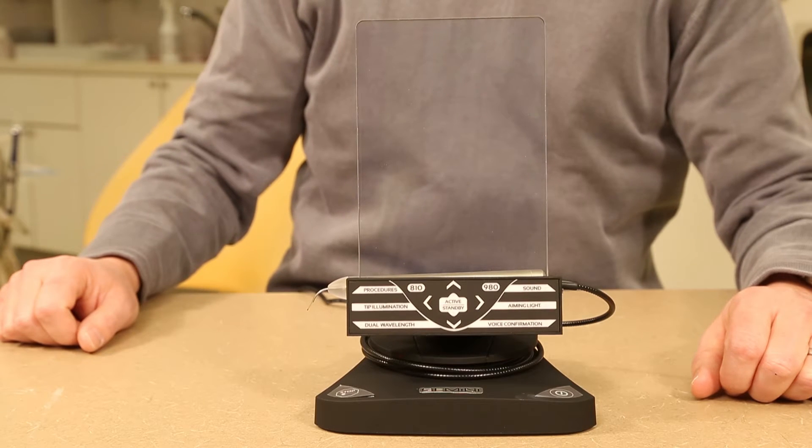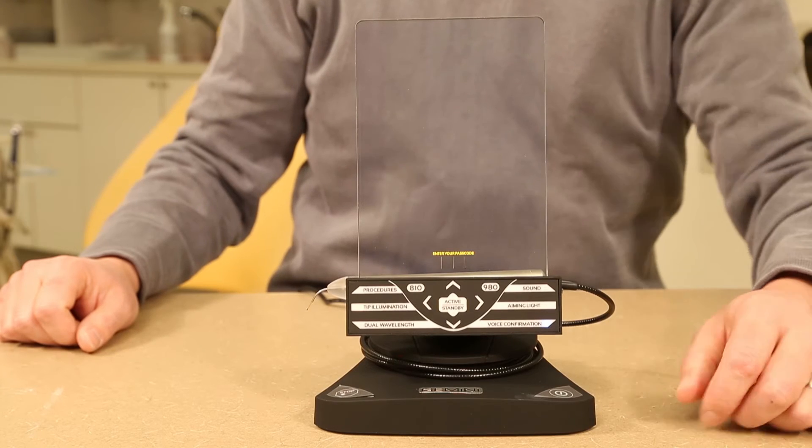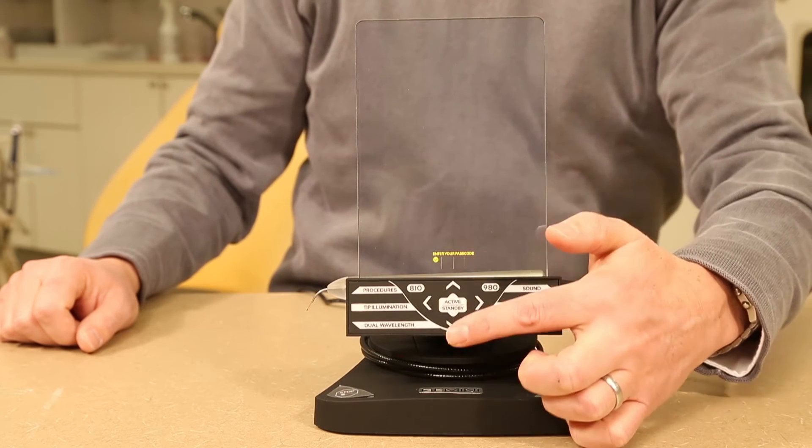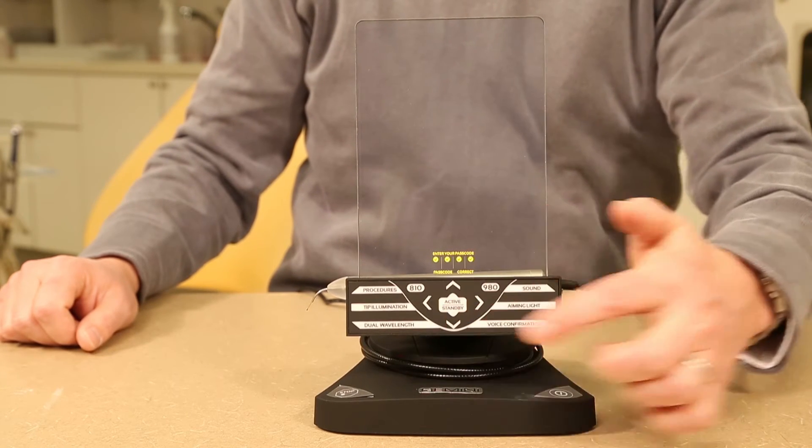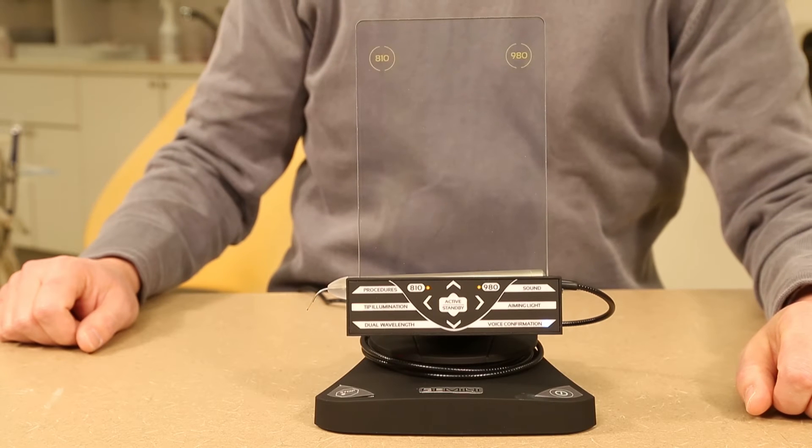It will immediately ask for a passcode. That code is arrow up, arrow down, arrow up, arrow down. Please select wavelength.